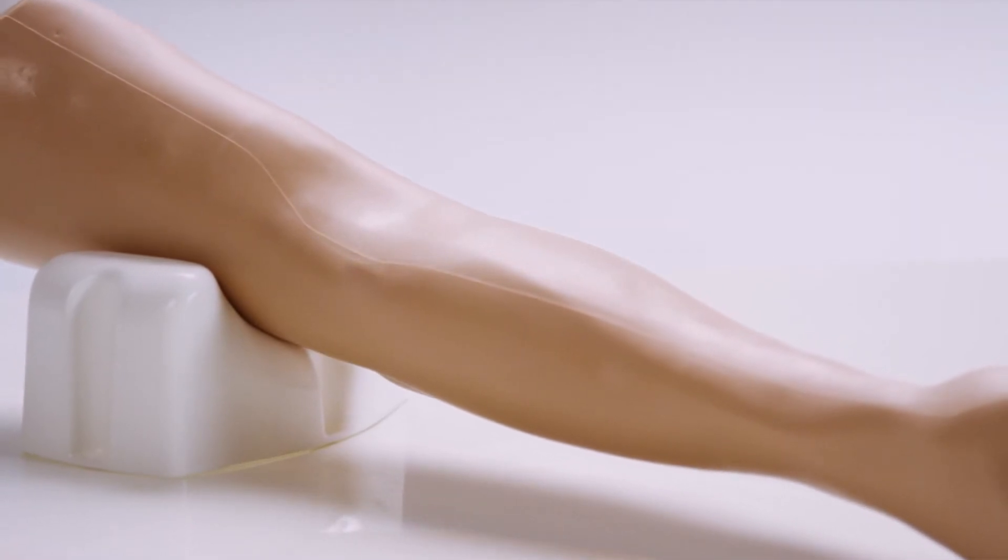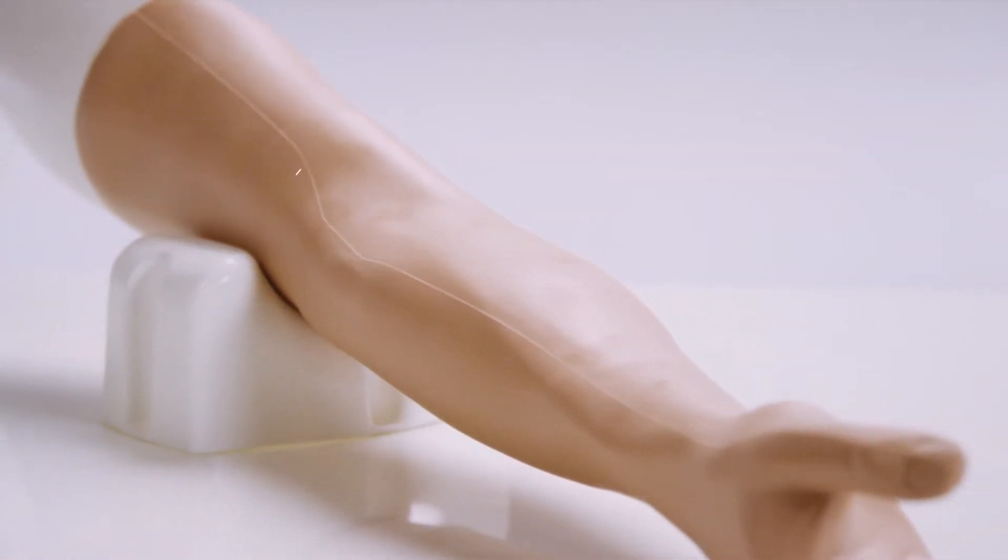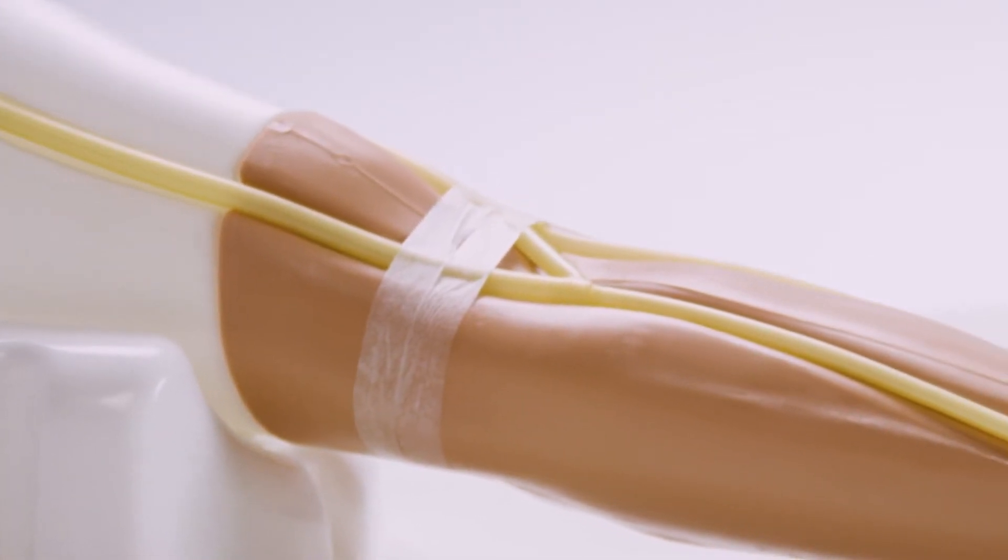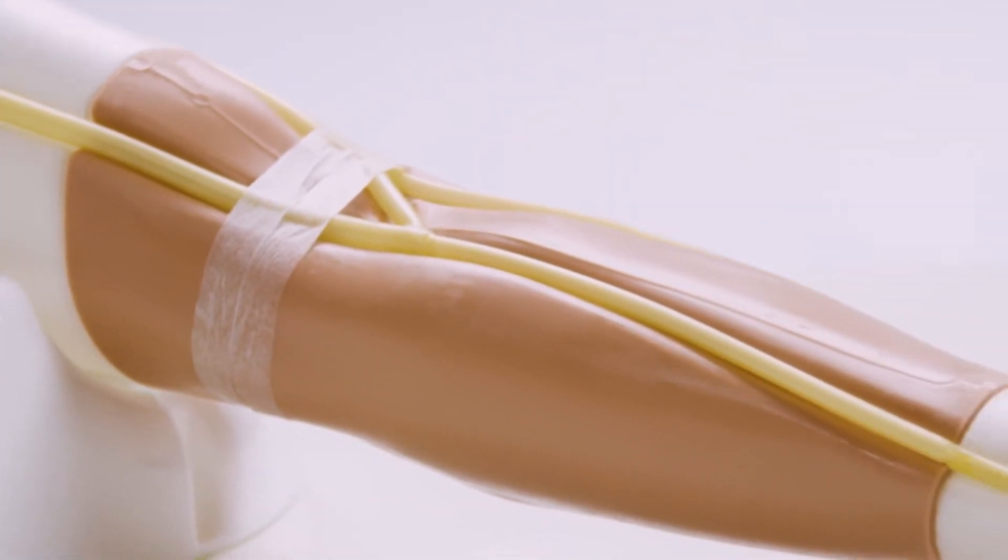Simulating an adult arm, its soft, flexible skin and underlying palpable veins provide realistic training in venipuncture, IV cannulation and IV infusion.